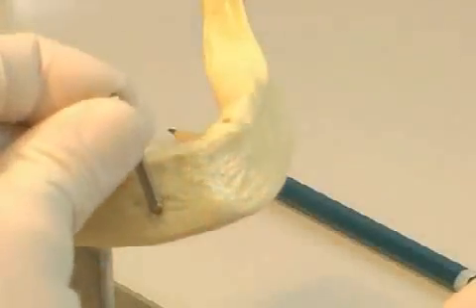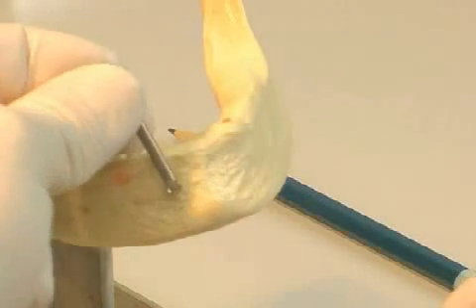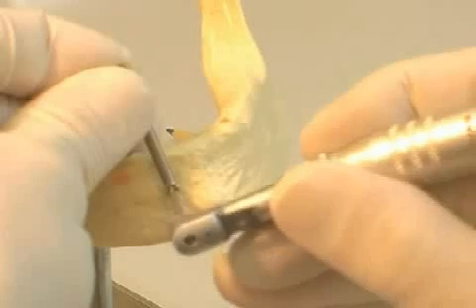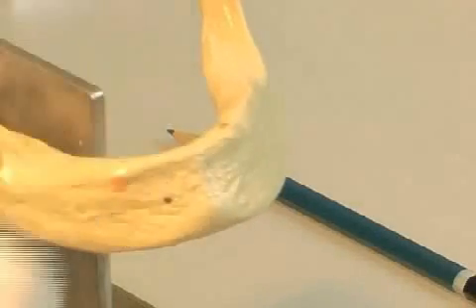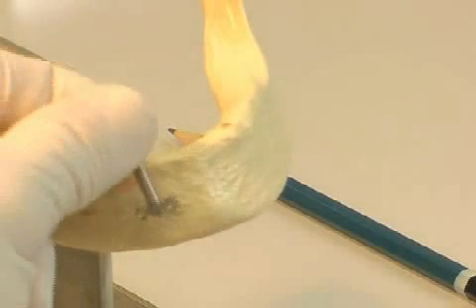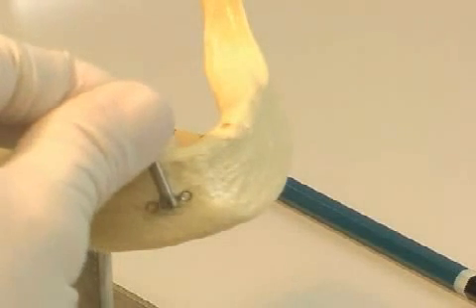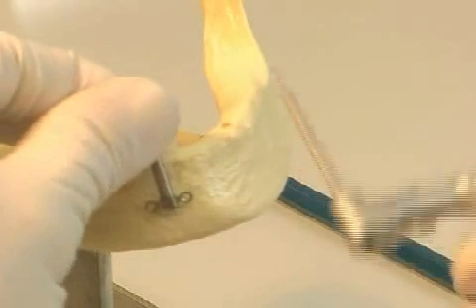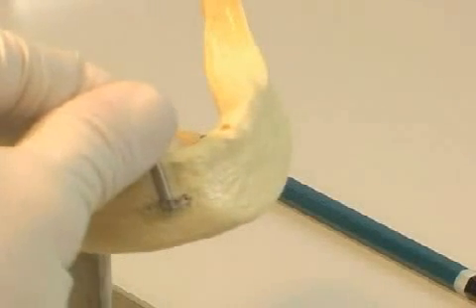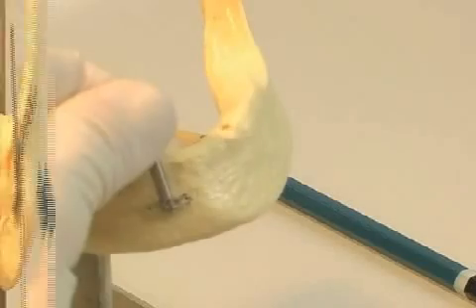You now see the function of a distractor on a lower jaw model. First, the distractor is attached to the lower jaw, which requires some hole drilling. During actual operations, the drill has to be cooled off with water in order to avoid heat damage to the bone. After the drilling holes have been set, the distractor is secured with small screws.